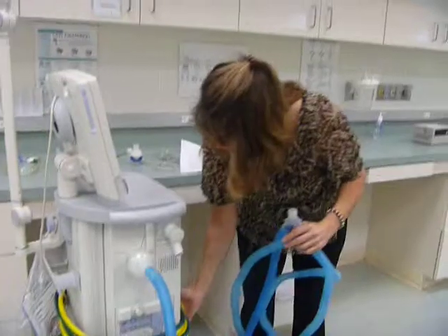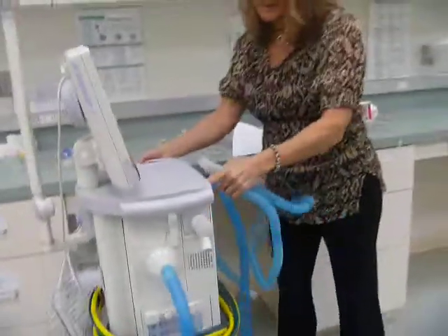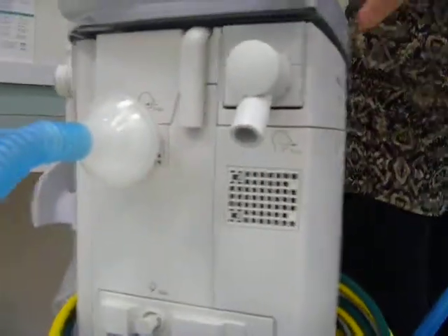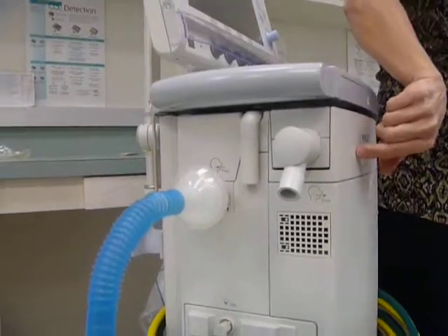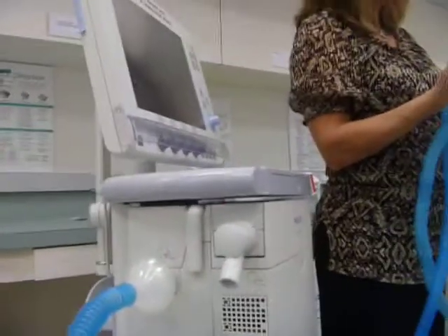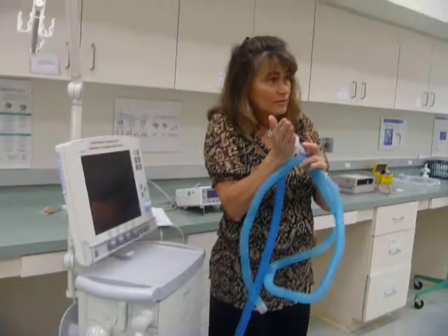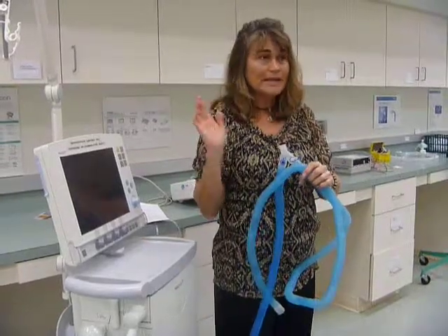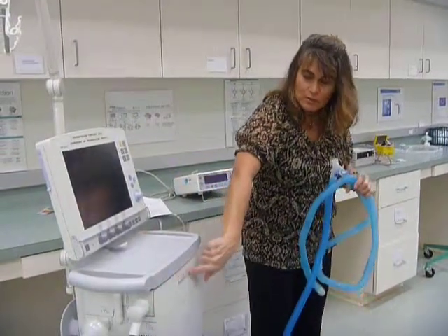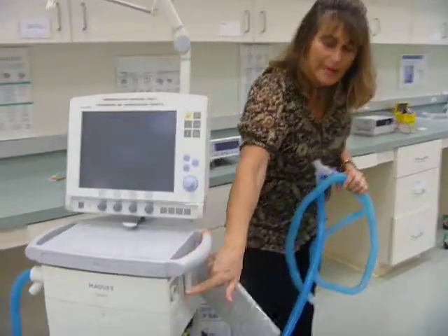This is kind of wrapped around pretty good. If I show you this cassette here, there's really not a whole lot to see when I open it and bring it out. So the exhaled air will come in here. This is inside where the exhalation valve is located. So it's blocked off during inspiration, so all the air gets diverted into the patient's lungs. And then it opens on exhalation, and the exhaled air will come out and then exit to the atmosphere.